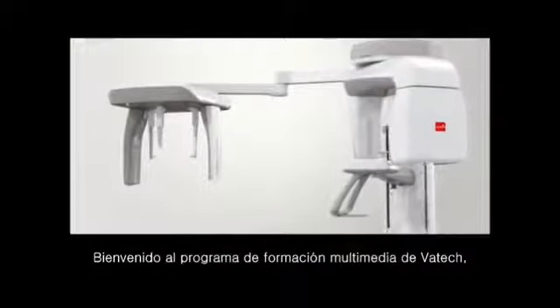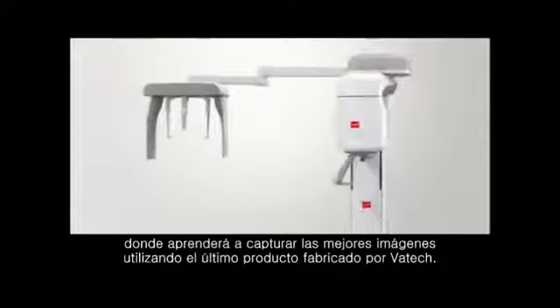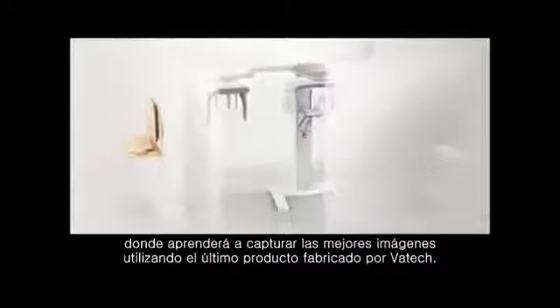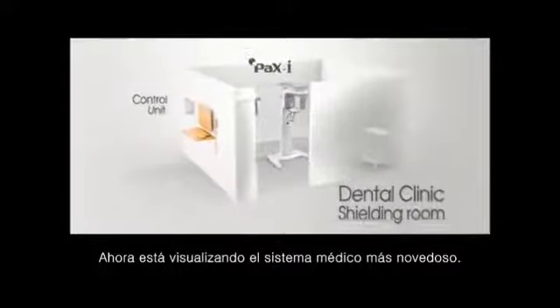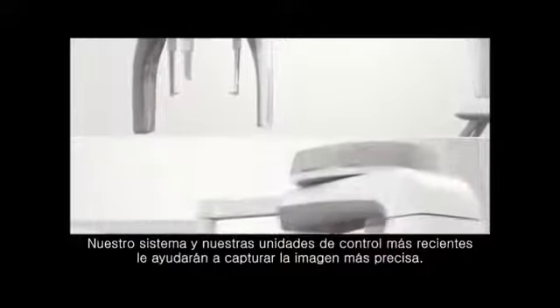Welcome to Vatech Video Training that shows you how to take the optimum images using the latest product manufactured by Vatech. Now you are watching the state-of-the-art medical system. Our latest system and control units will take you to acquire the most accurate images.